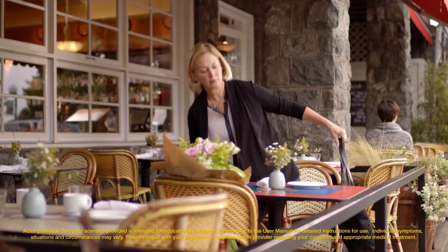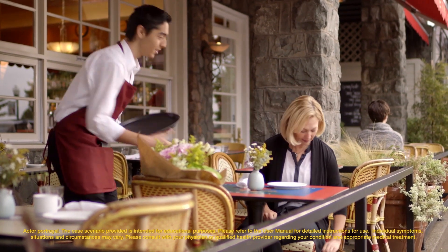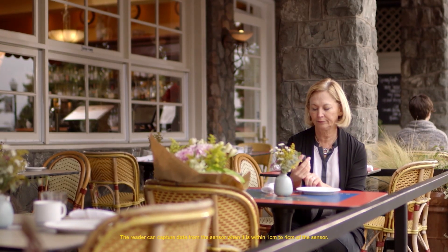Sarah can take her first reading an hour after the sensor has been activated, and she can do that anytime, anywhere. If the reader is off, just press the blue home button to turn it on — it's the only button. All other actions are done on the touchscreen.